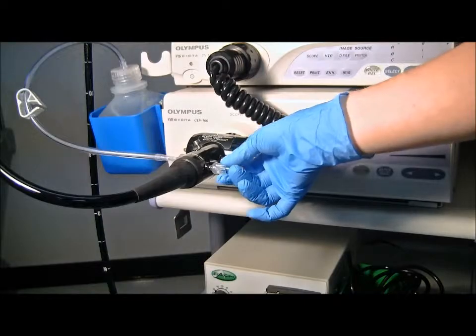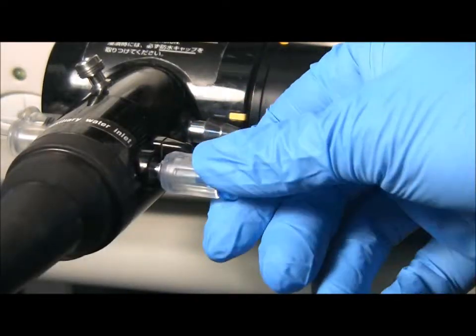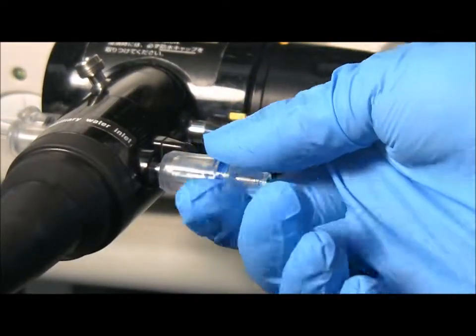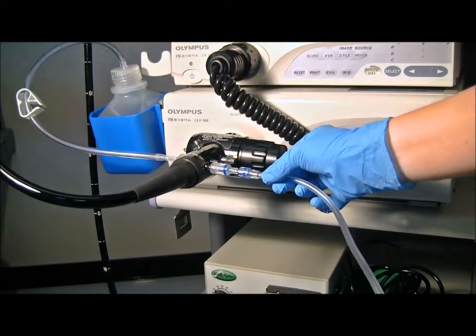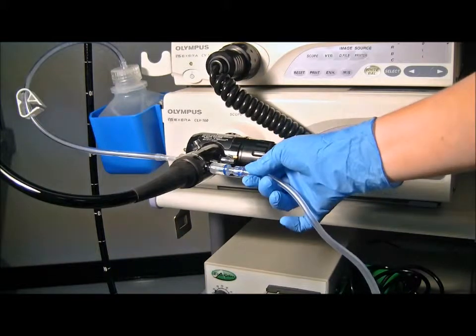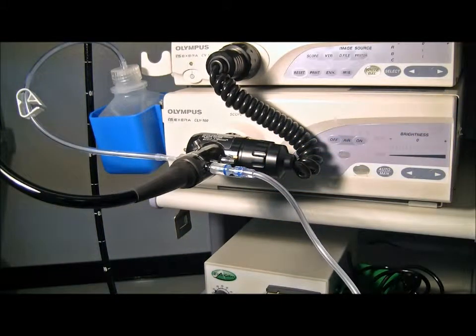Connecting to the scope, however, is virtually identical to both the reusable and multi-use connectors. Attaching the endogator tubing is also the exact same, luer locking the endogator backflow valve to the single-use connector's valve. This creates a redundant backflow valve system offering a second level of patient safety against potential cross-contamination.